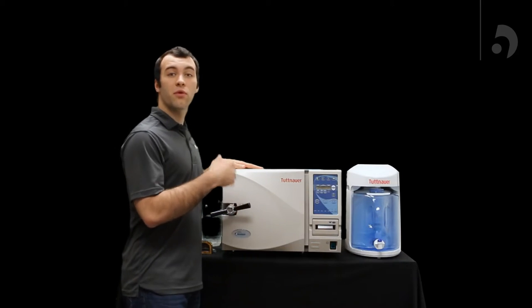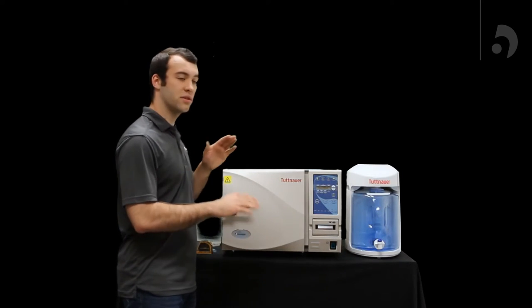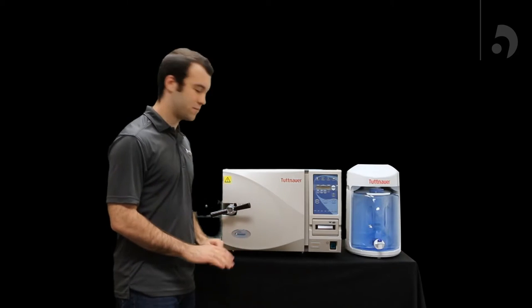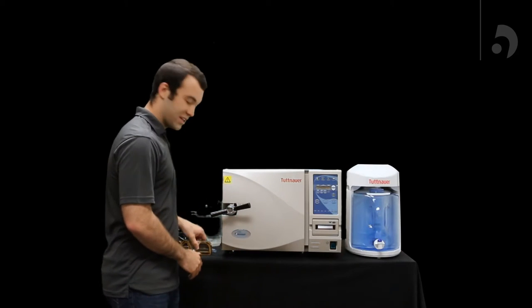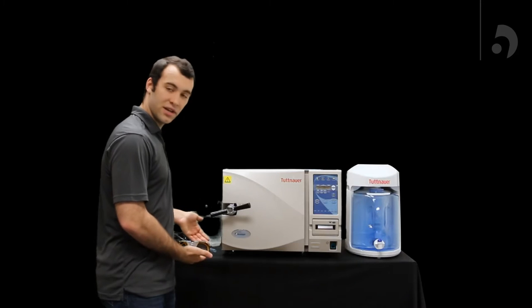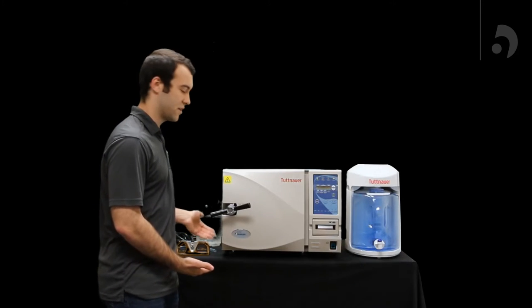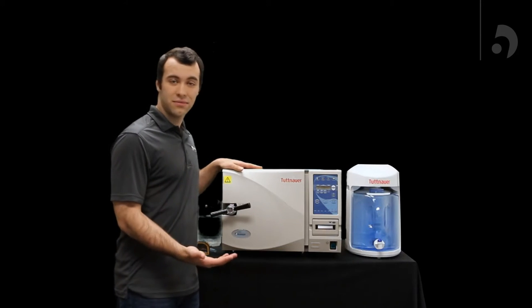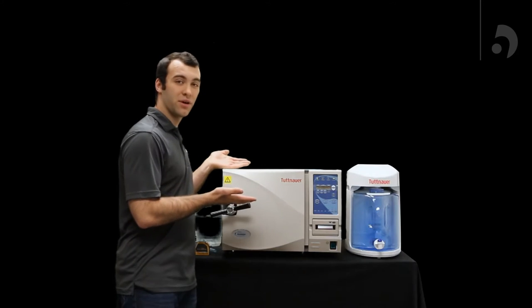Now, the first thing you're going to do before you pull it out of the box is make sure the table is sturdy and level. For leveling it out, all you need is a level. Toss it on there and you'll see if you have a nice, even surface. Once all that is set, you can actually get to setting up your unit.